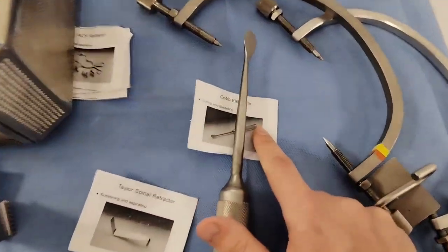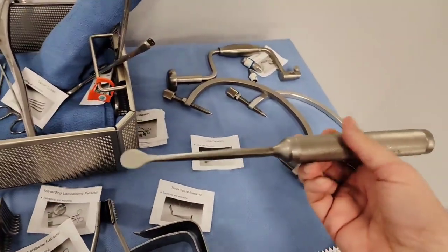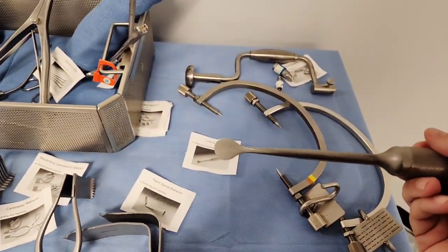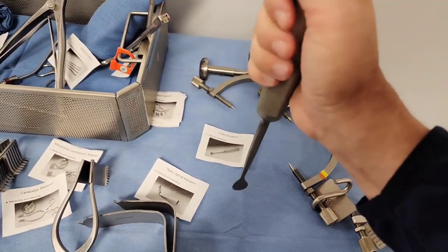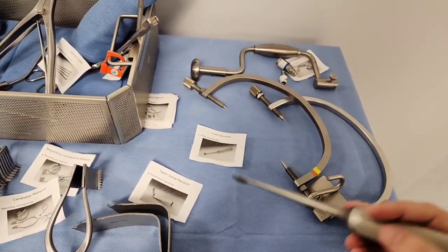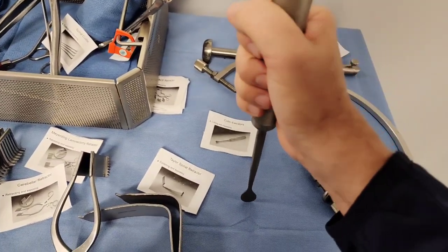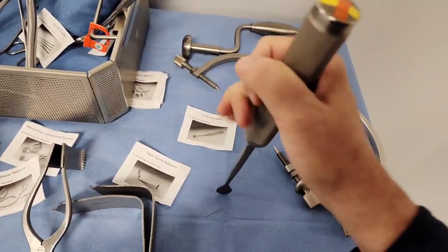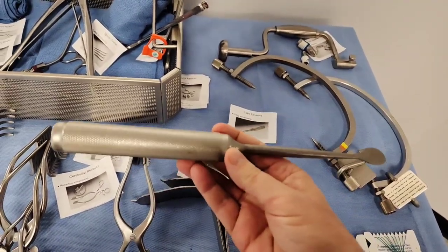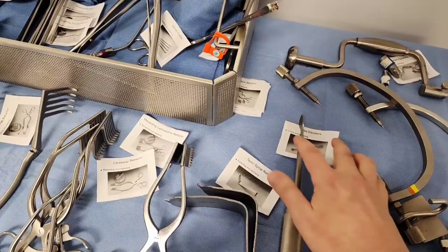Looking over here — this is what they call the Cobb elevator. It's kind of big. They also call it the periosteal elevator, but in this case it's a Cobb elevator — I think they kind of go hand in hand. What are we using this for? In back cases, we're going back and pushing things to the side, scraping off osteophytes and periosteum. It's a multi-use tool, mainly helping the doctor get in there and retract back as they're trying to isolate things. Elevators, by definition, elevate or scrape off periosteum.